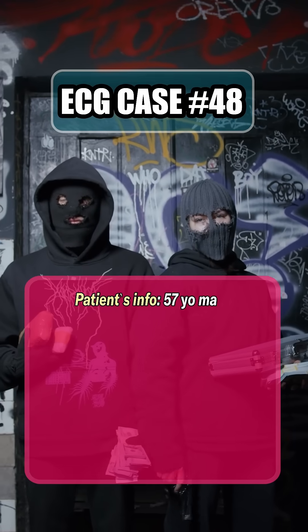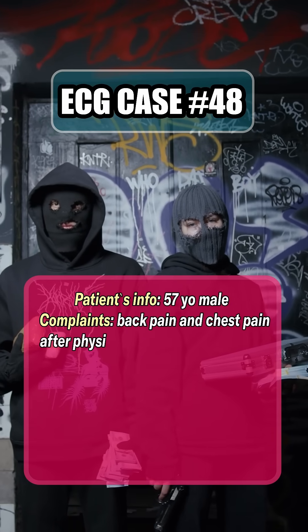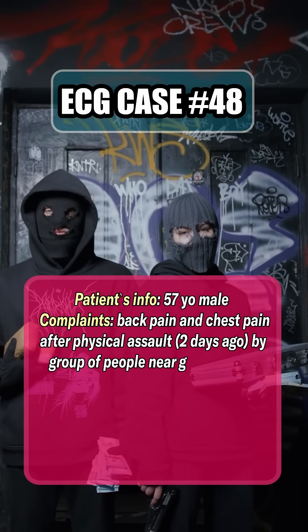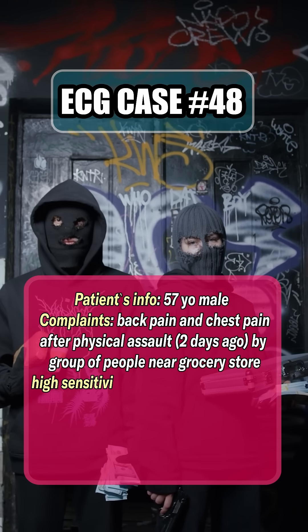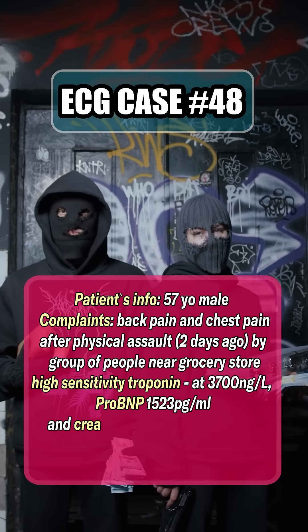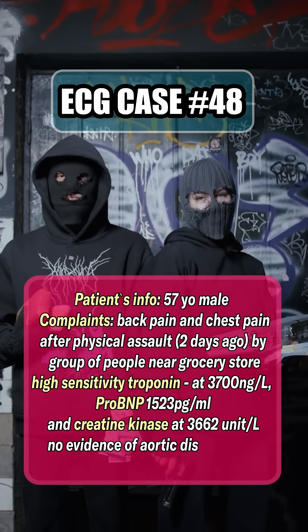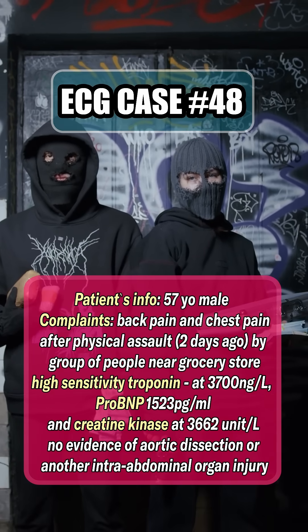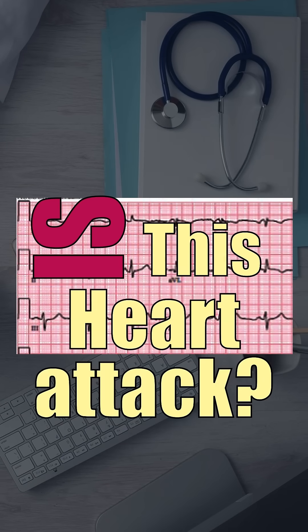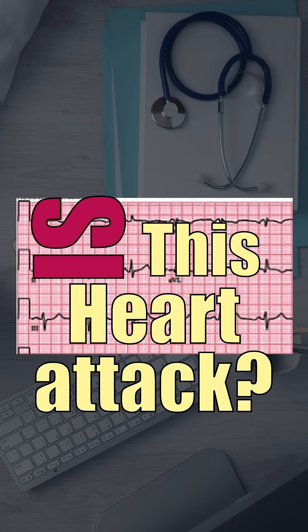Two days after being assaulted in a street fight, a 57-year-old man presents with chest pain and back pain. His troponin, NT-proBNP, and creatine kinase are all very high. But is this really a heart attack, or something else?